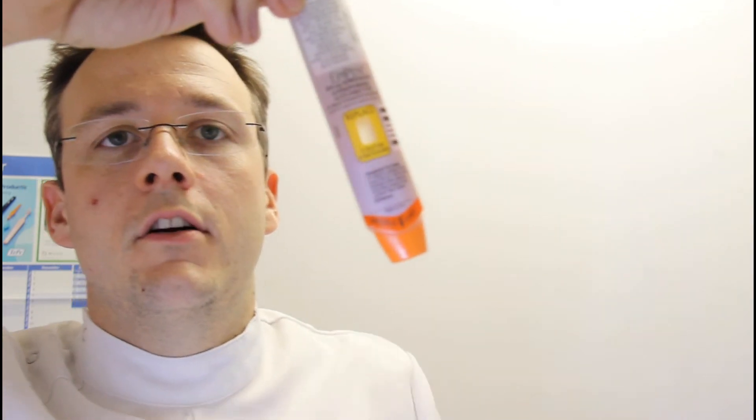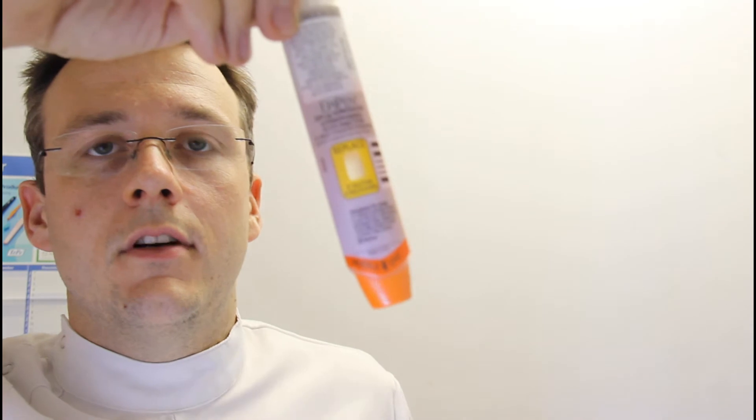That spring will still fire at the same speed no matter what clothing they're using, and that needle will go through jeans or even probably a thin leather jacket, but preferably straight into the thigh through some thin clothing is the best.